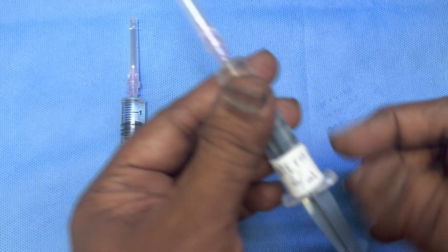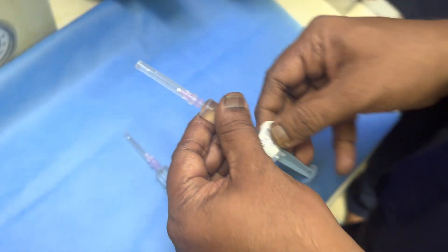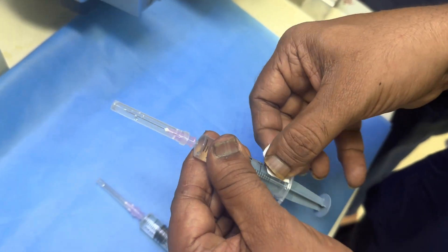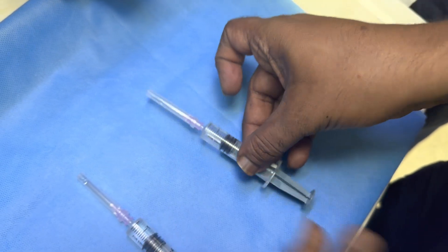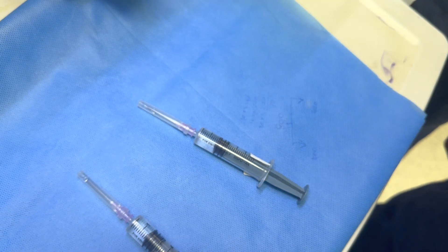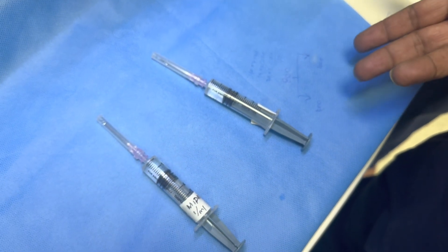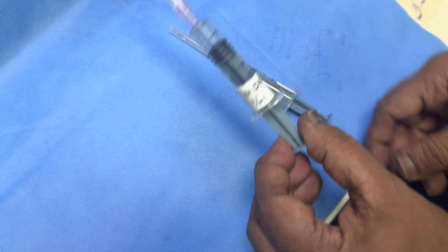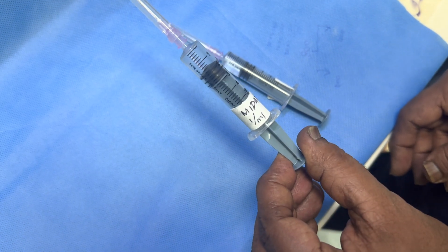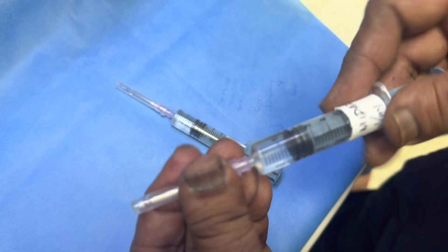Now, if you keep the plaster here — for example, if you keep the plaster here like this — you will not know what the drug is or how much you have to give. But if you see here, the drug is clearly visible and you can start injecting like this.